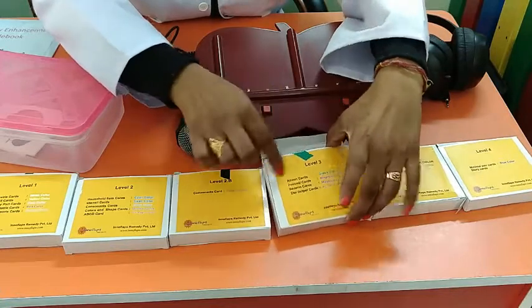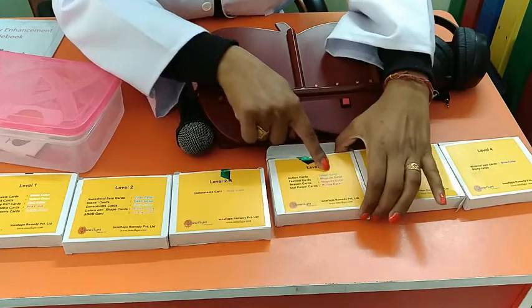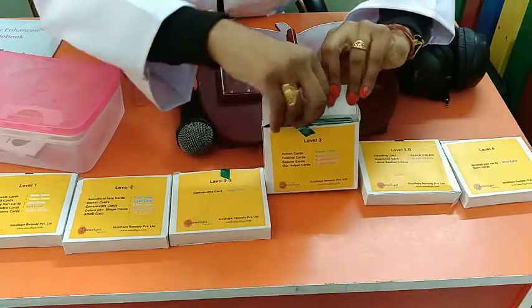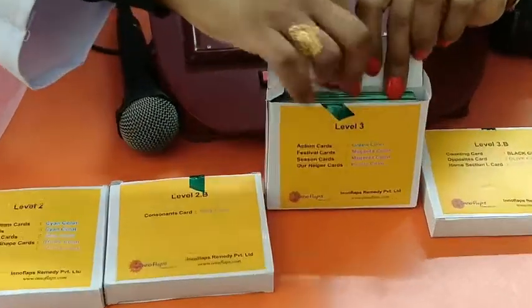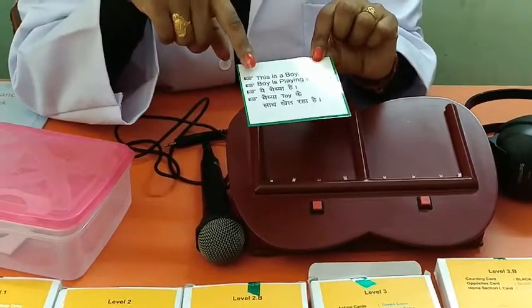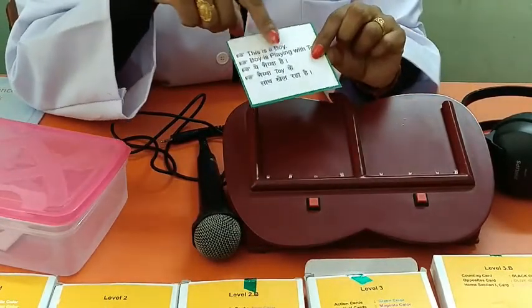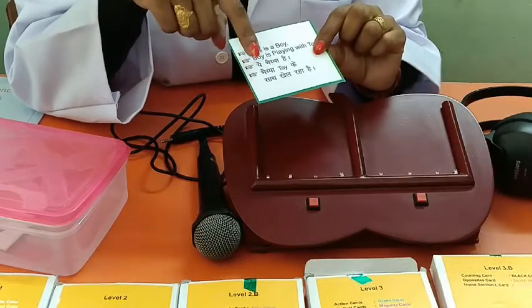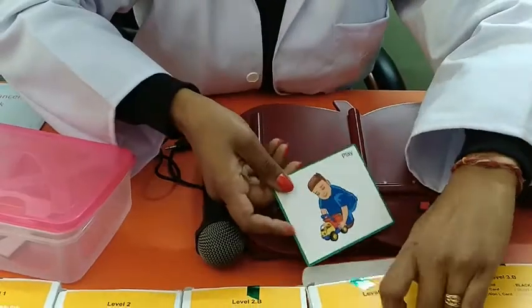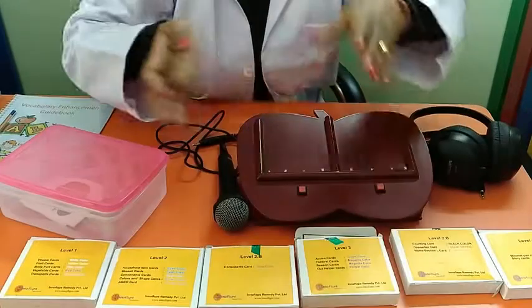In sentence cards, each card has a defined border. The green color cards are the sentence cards — those are the action cards. By looking at the box, we can take out the green color cards. Parents can directly read out the card and record their voice in the device. For example: 'This is a boy, the boy is playing with a toy.' In Hindi: 'Yeh bhaiya hai, bhaiya toy ke saath khel raha hai.' We have all sentences — daily routine cards and high-level cards.